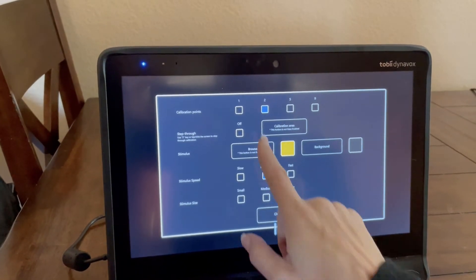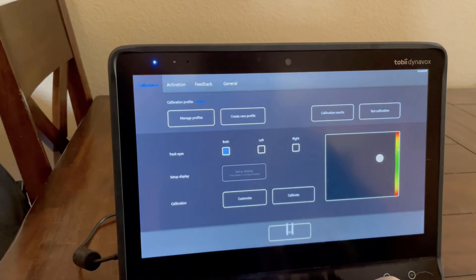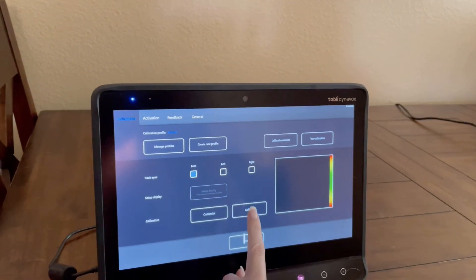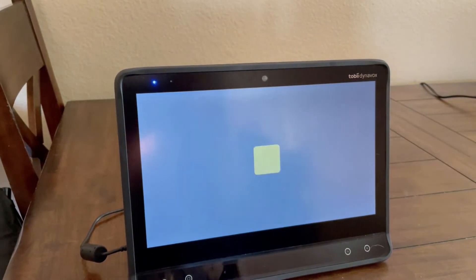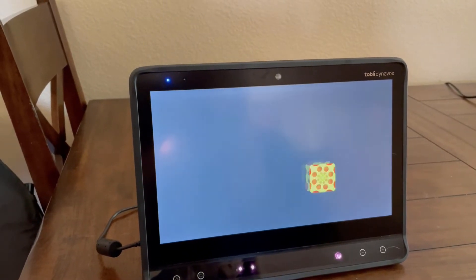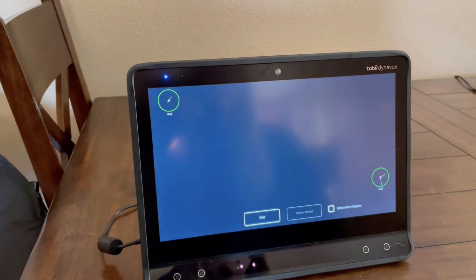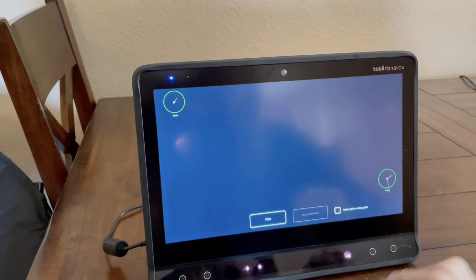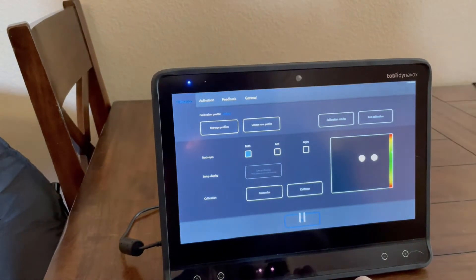For this video I'm going to do a two-point calibration. I'll look at my eyes in the distance, hit calibrate, say yes, then look straight at it and follow it. It then lets me know I've got great green eye gaze calibration, and I close that down.